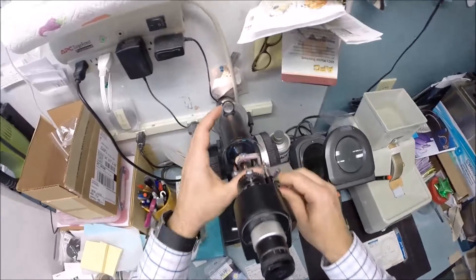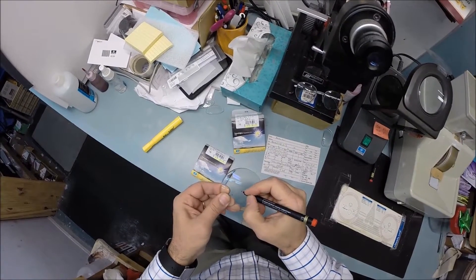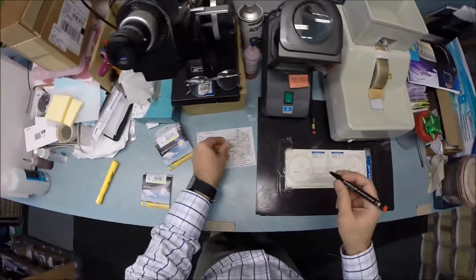Check your astigmatism correction. Everything is lined up perfectly and I'm going to put three dots on your lenses which are kind of difficult for you to see so I'm going to darken these for you. That is one and that is two and that is three and this is the right lens.